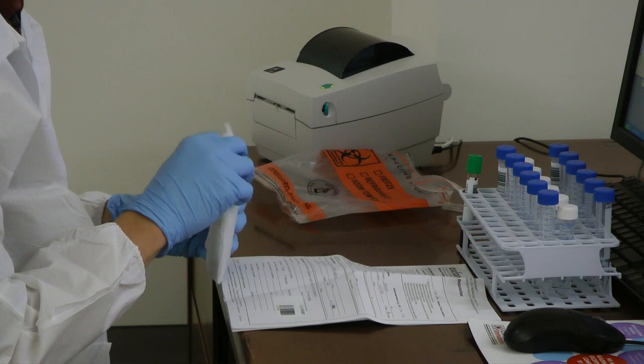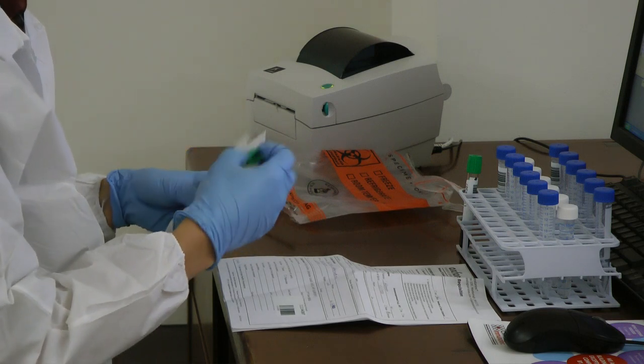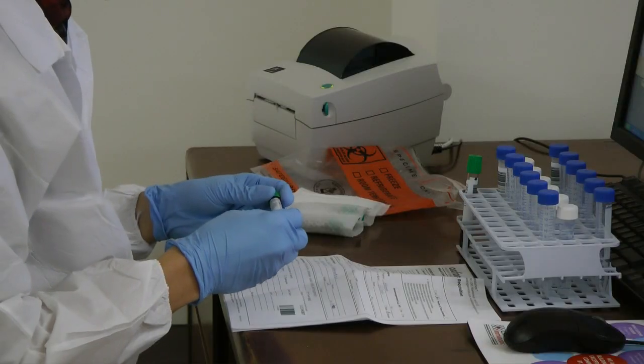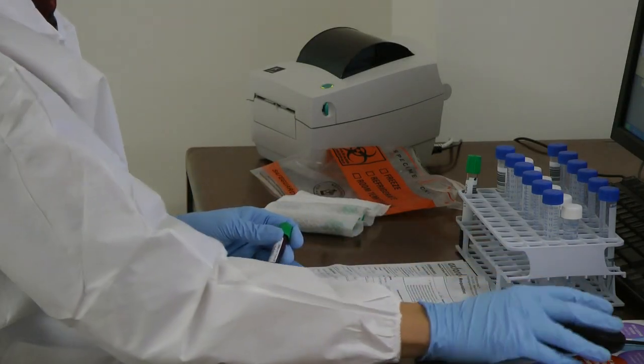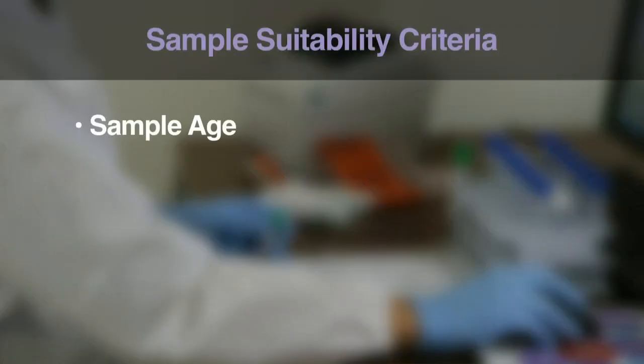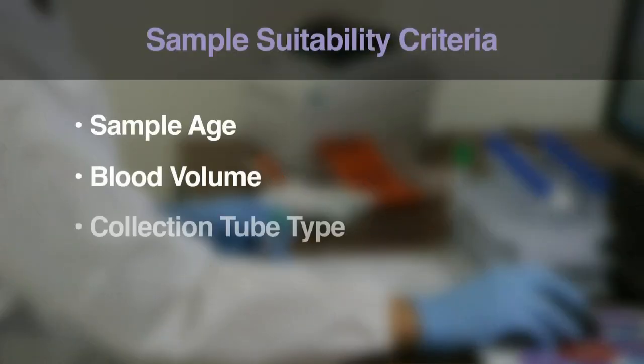Samples and accompanying test requisitions are removed from the biohazard bags. Patient information on the tube is matched to patient information on the test requisition and the sample is assessed for suitability including sample age, blood volume, and collection tube type.